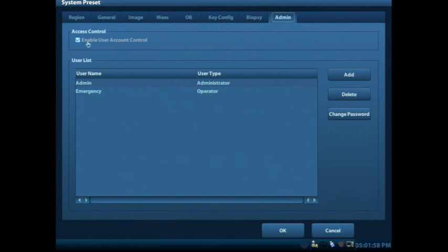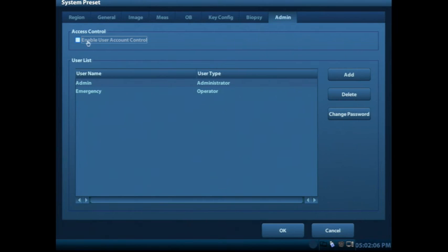If you prefer to leave that, then you're more than welcome to. But if you'd like to deselect that box right here, that means that when you boot up the machine next time, you won't have that reminder or login page.